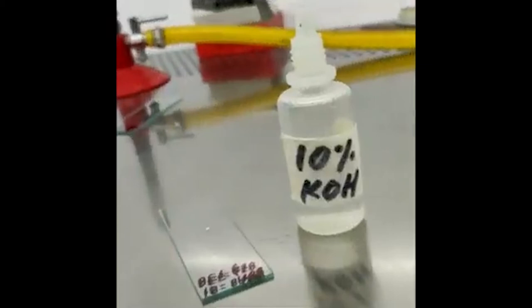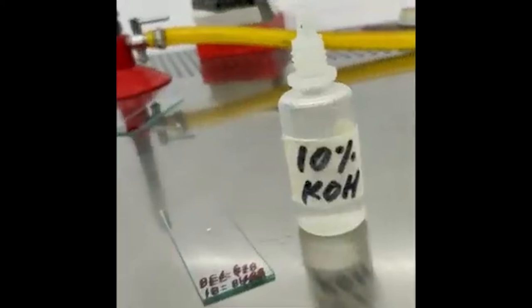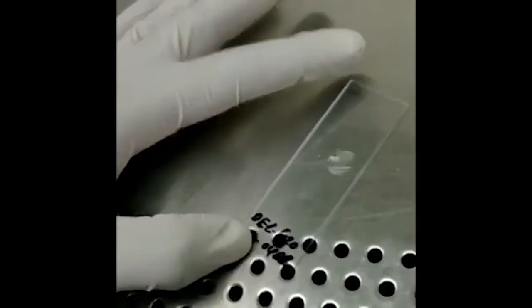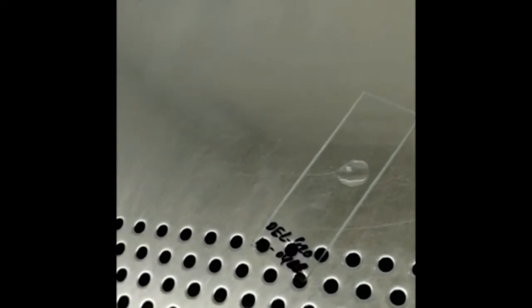Potassium hydroxide or KOH wet mount preparation is done for the demonstration of fungal elements like yeast, hyphae, and pseudohyphae. If performed correctly, it can lead to a quick and reliable diagnosis of fungal infection. Potassium hydroxide acts by digesting keratin and causing lysis of epithelial cells, WBCs, RBCs, mucus and debris, thereby increasing the visibility of fungal elements. A few drops of 10% weight-by-volume solution of potassium hydroxide are instilled over the glass slide containing the inoculated specimen and covered by a cover slip.